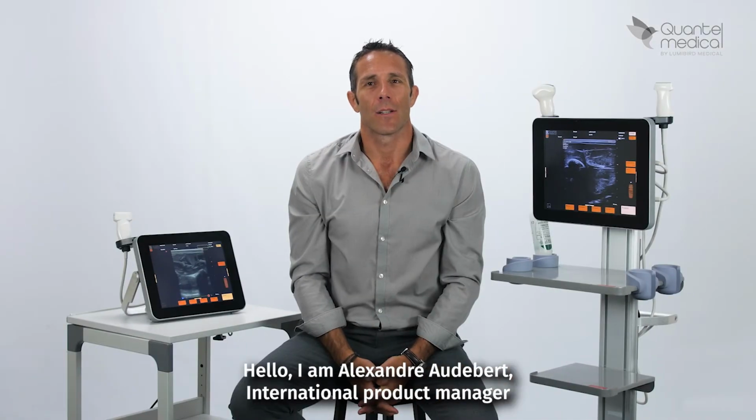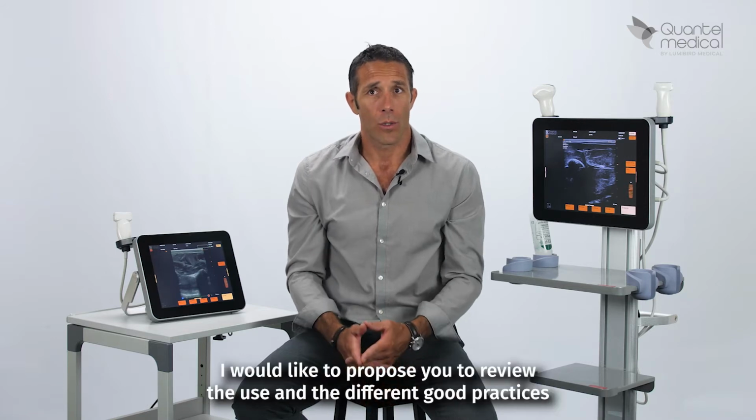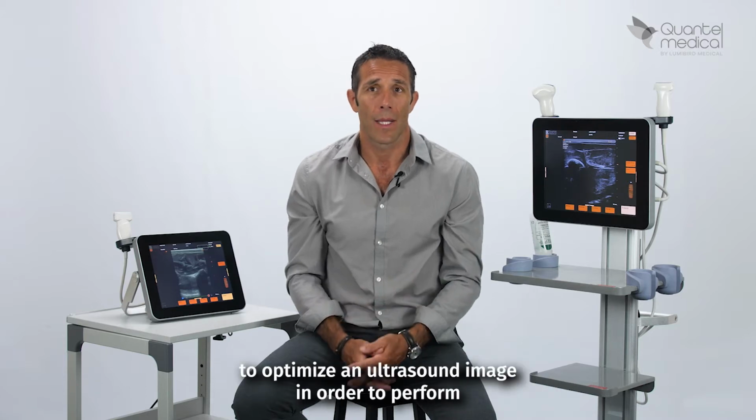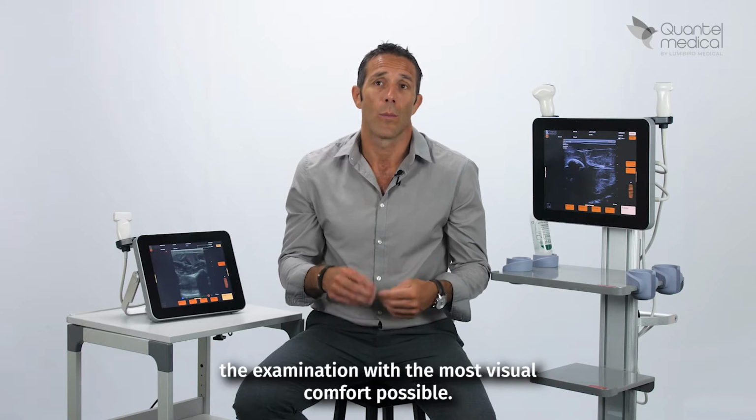Hello, I am Alexandre Audebert, International Product Manager for the Quantel Medical point-of-care ultrasound range. I would like to propose you to review the use and the different good practices to optimize an ultrasound image in order to perform the examination with the most visual comfort possible.